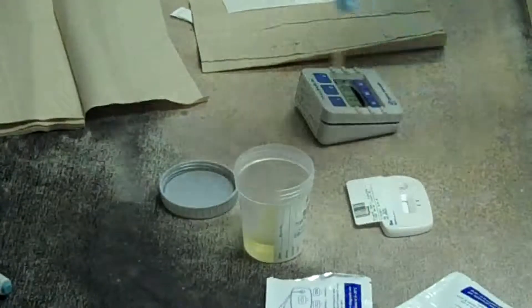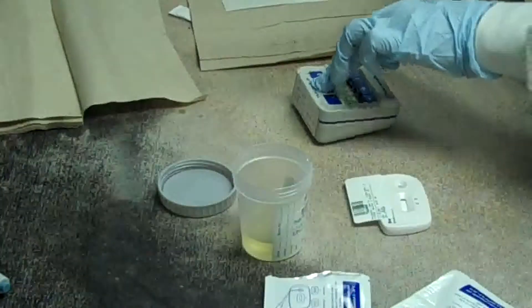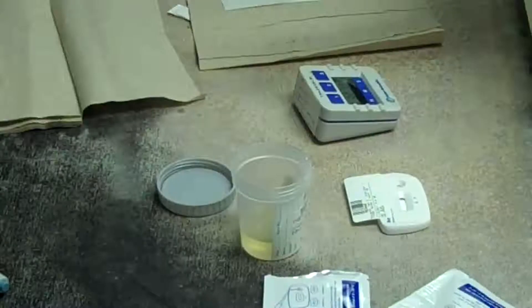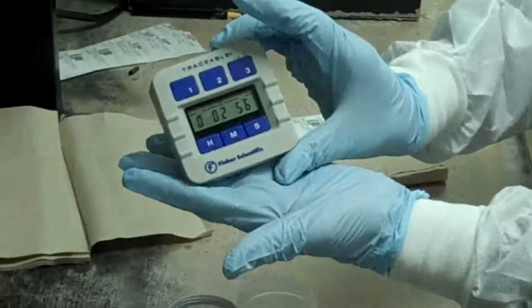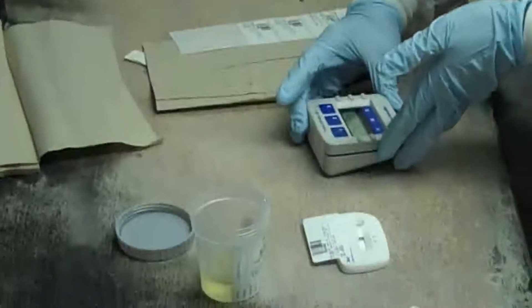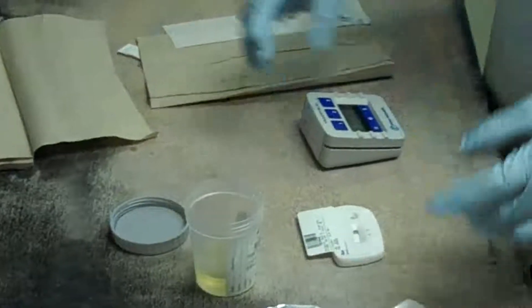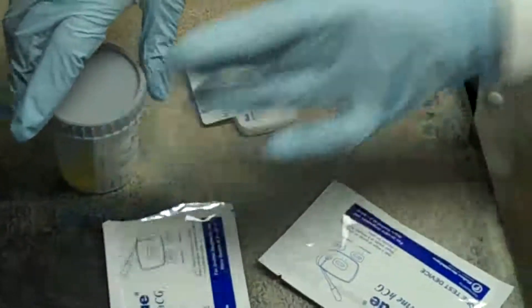Start the timer for 3 minutes. Do not move the test kit during the sample testing procedure. Close the urine sample.